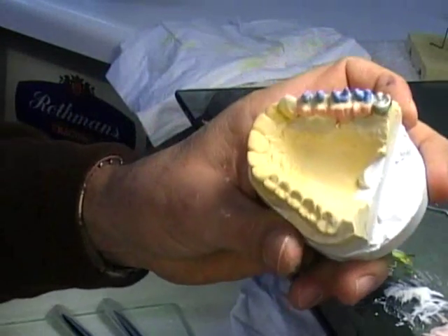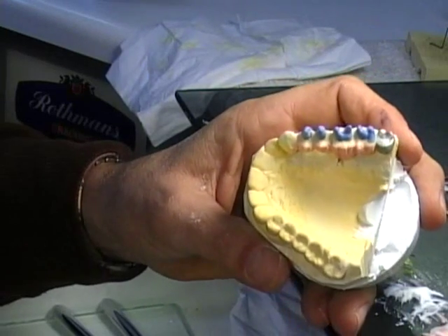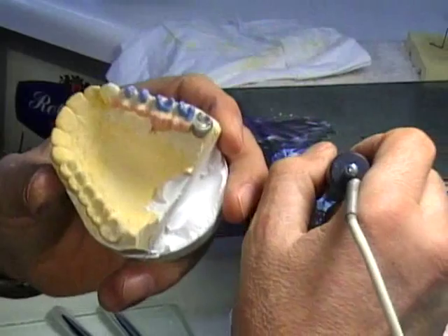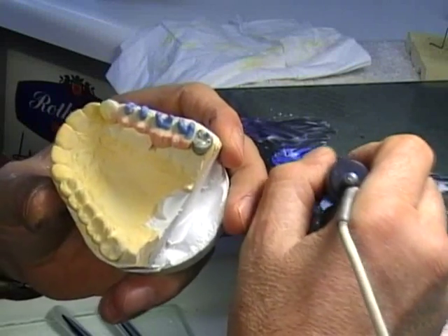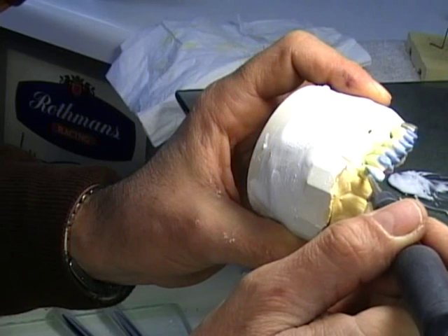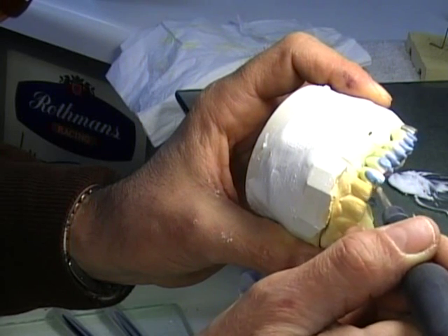So concerning my light — I guess this is what I want. I'm going to be putting also a stratification of light in this area right here. Just like that. And that's it.